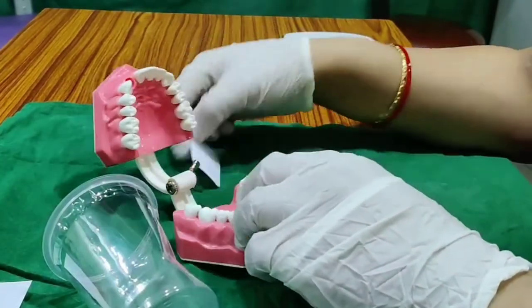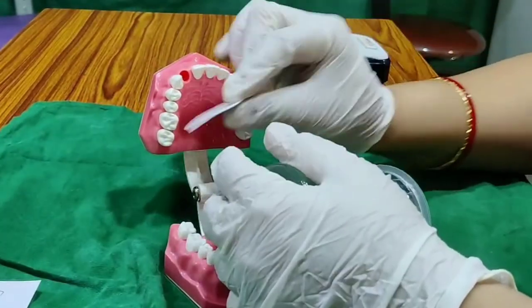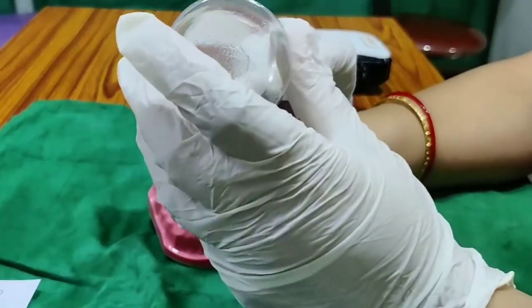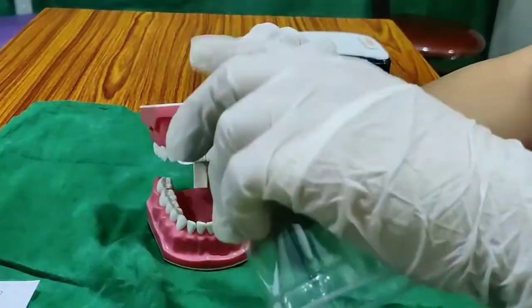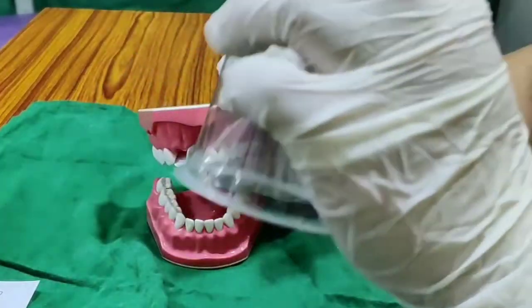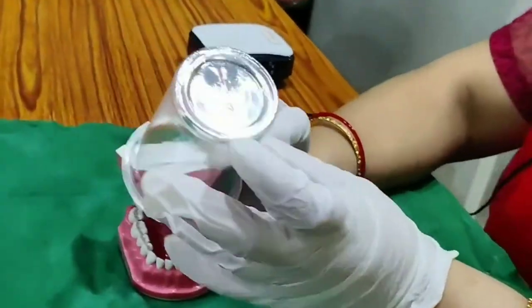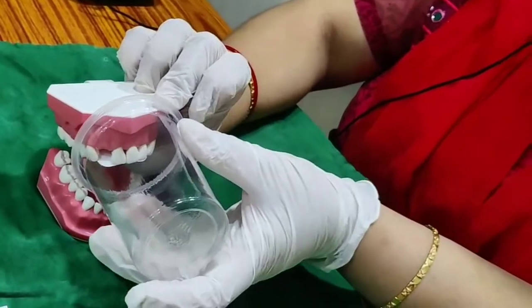The common errors during angulation are elongation and shortening. If you place the film and the bisecting angle is at the middle at 45 degrees, the image is correct. If you increase the angulation, the beam focuses from the top, causing shortening of the tooth on the image. If you decrease the angulation, the tooth becomes elongated. So increased angulation causes shortening and decreased angulation causes elongation — it is the reverse of what you might expect.